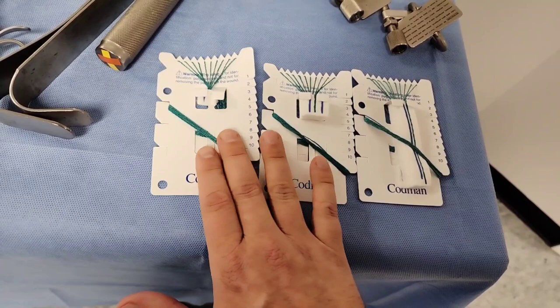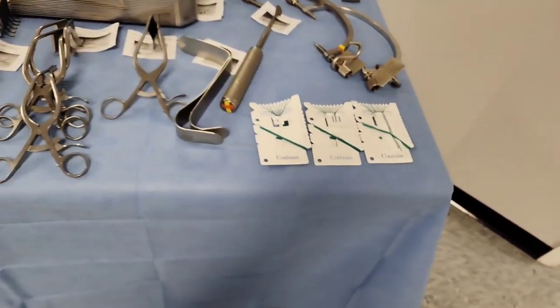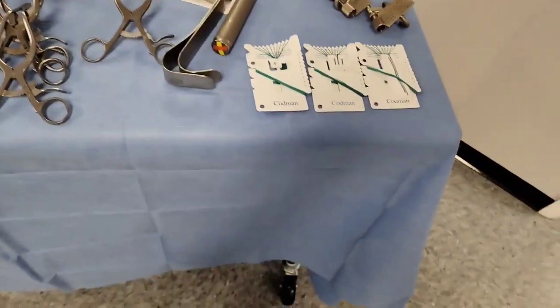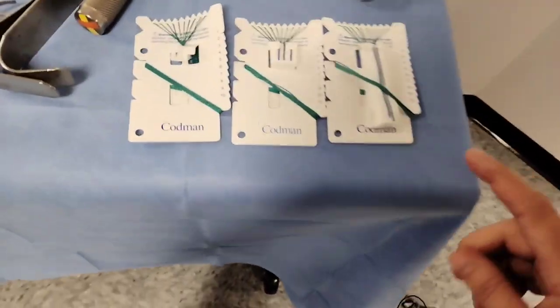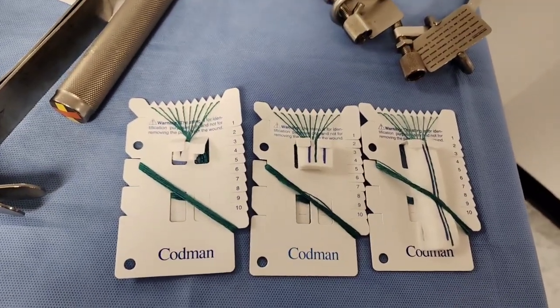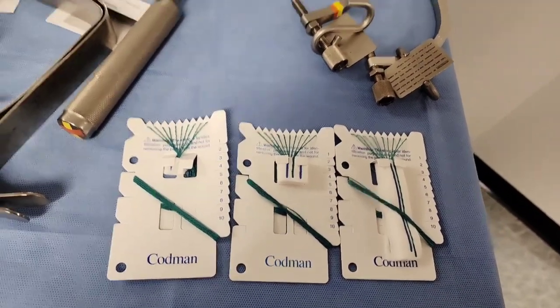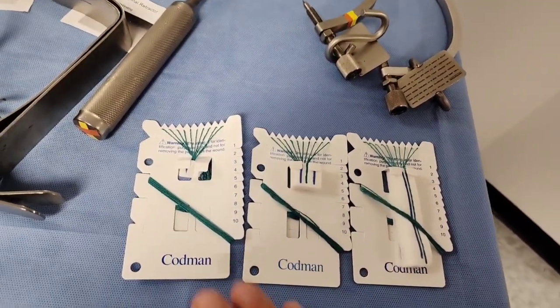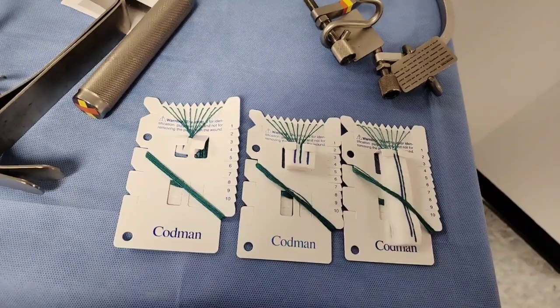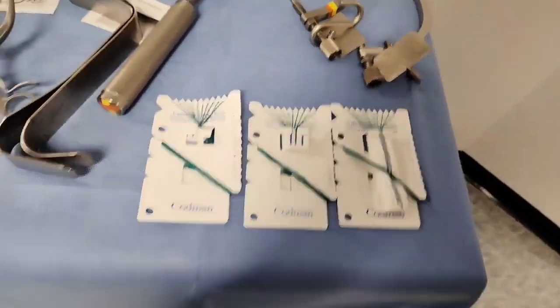Don't confuse these with kitners or peanuts — those are for blunt dissection. These are cottonoids and they're used in neurosurgery: craniotomies, back surgery. They're actually a hemostatic type of material — sponges for neuro.